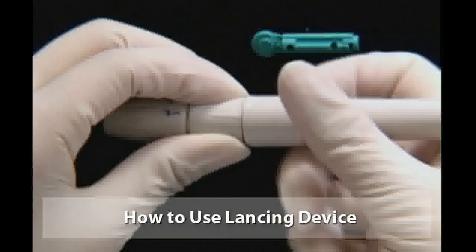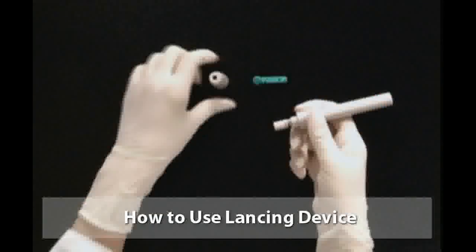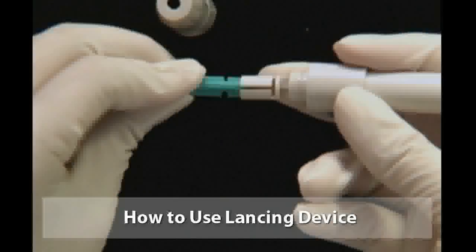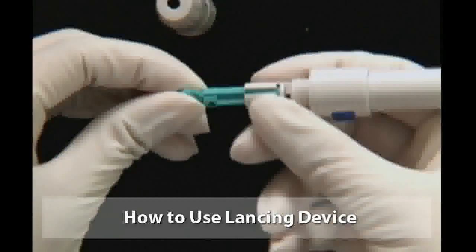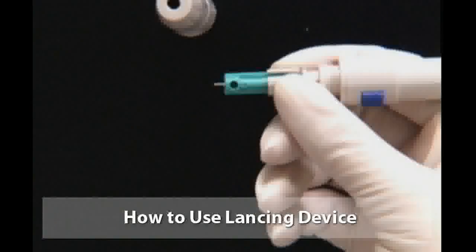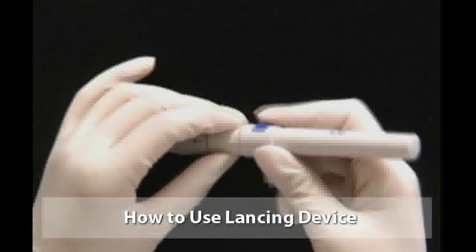If you have a lancing device, assemble the lancet with lancing device. Unscrew the cap from the lancing device body. Insert the lancet into the lancing device holder and push down firmly until it is fully seated. Twist the lancet protective disc until it separates from the lancet. Screw the cap onto the lancing device body.